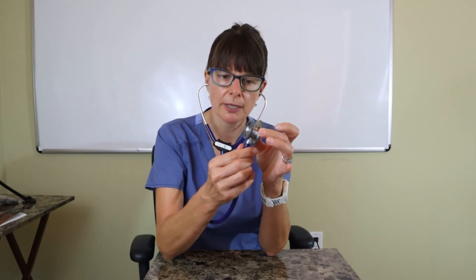Right now I'm on the diaphragm. If I flip it over, I'm on the bell of the stethoscope. Make sure you check this before you use it, otherwise you might not hear anything and wonder if the patient has absent breath sounds when they're actually there — you just didn't flip your stethoscope.